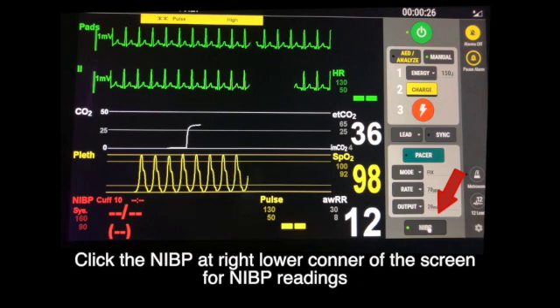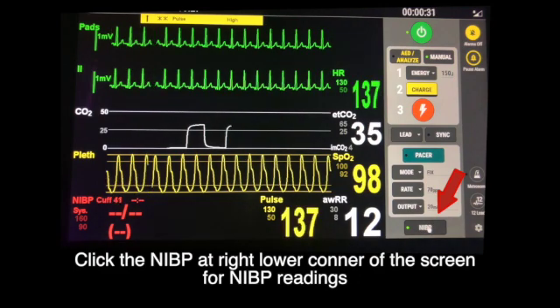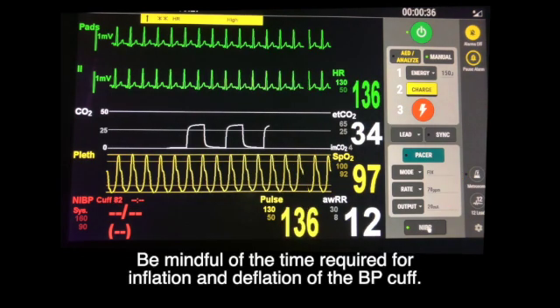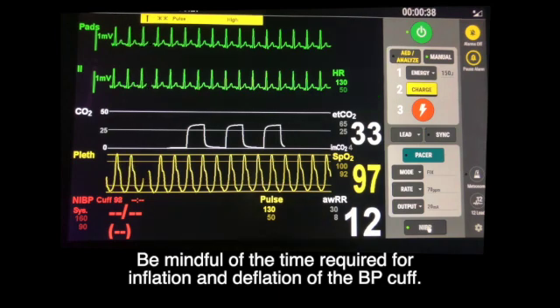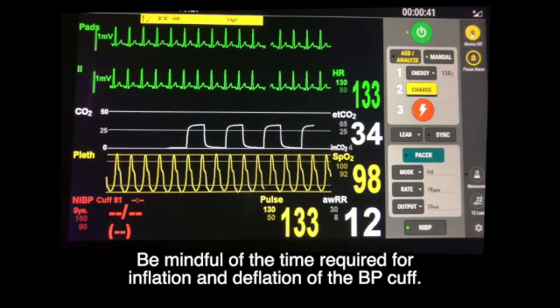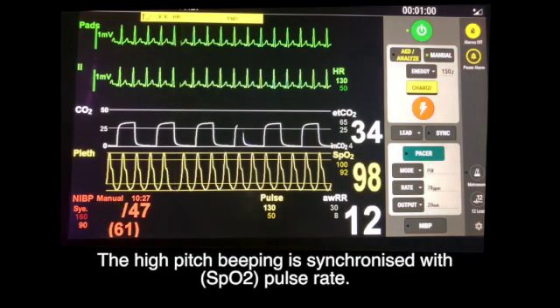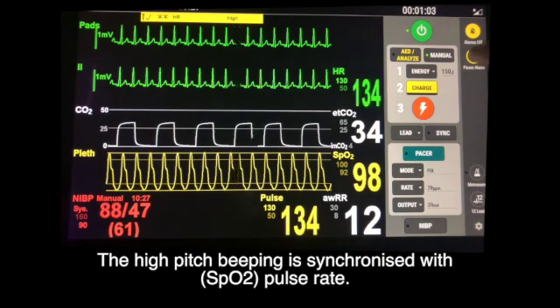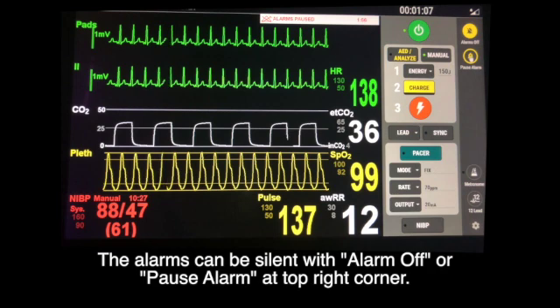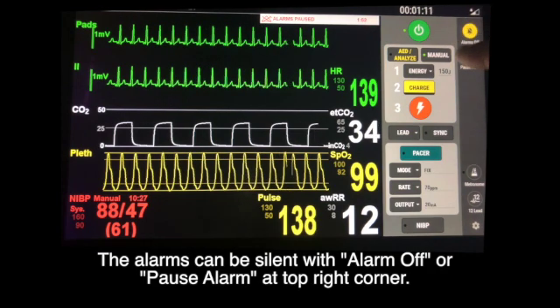Click the non-invasive blood pressure at the right lower corner of the screen for non-invasive blood pressure readings. Be mindful of the time required for inflation and deflation of the blood pressure cuff. The high-pitch beeping is synchronized with the SpO2 pulse rate. The alarm can be silenced with alarms off or pause alarm at the top right corner.